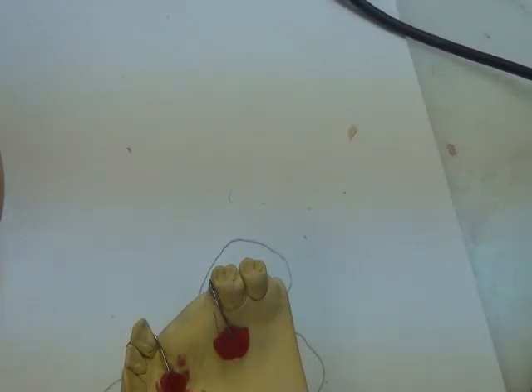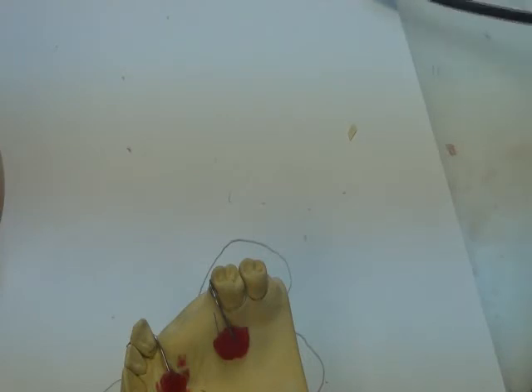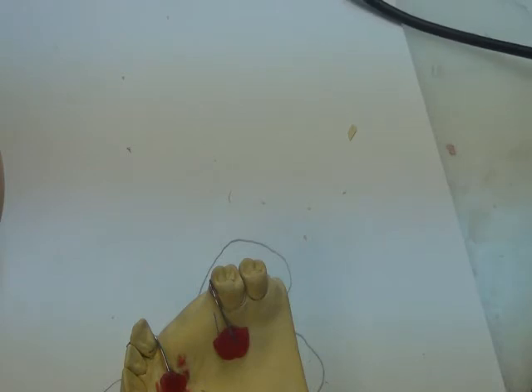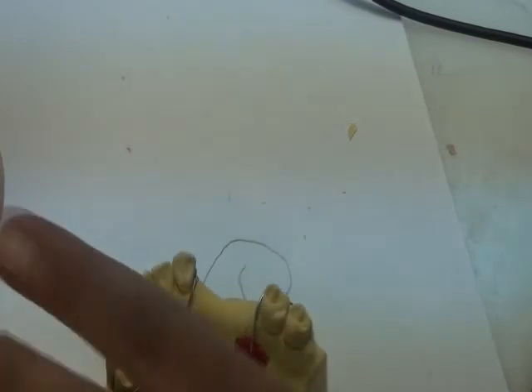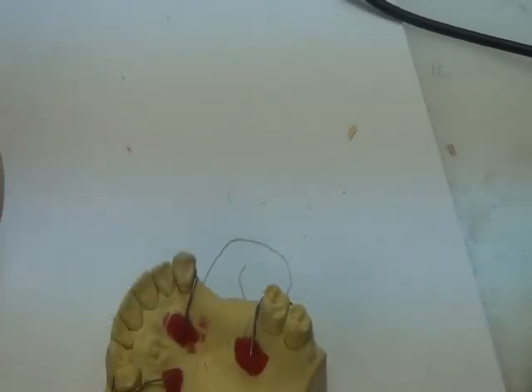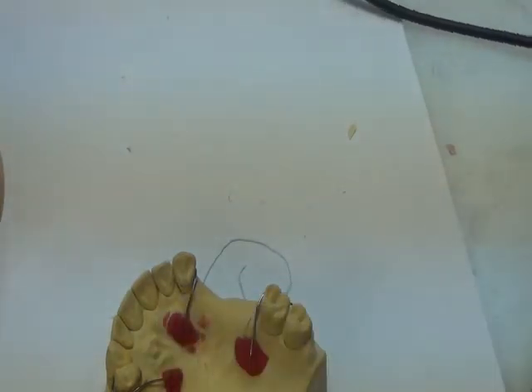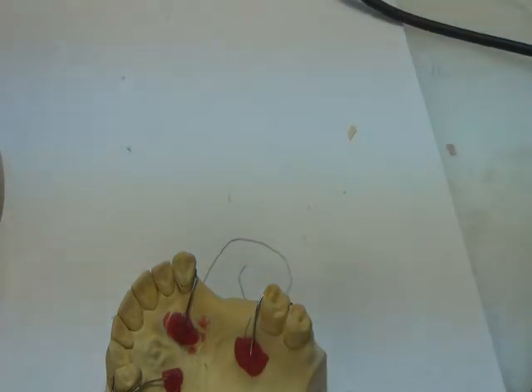Remember that when we are setting teeth, we are adding wax in the form that we want acrylic to be in later on. So it's the same steps where we add wax in between the teeth as interdental papilla. We add wax on the palatal side. And we also make what we call a major connector in wax. For example, in the upper case, we make the palatal coverage with the wax, making the outline. We will draw the outline in a moment.